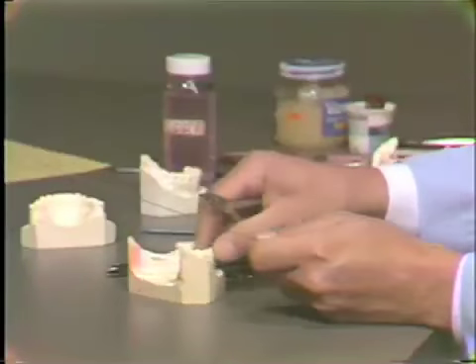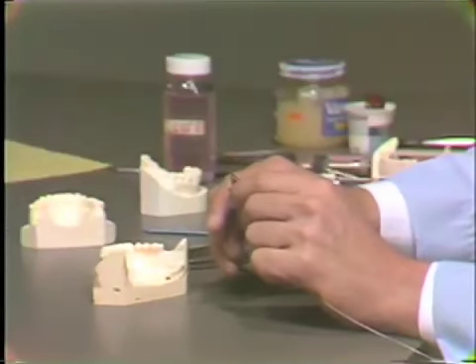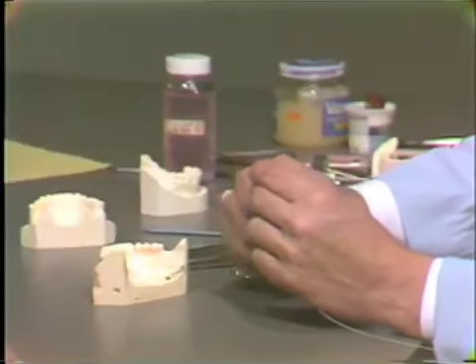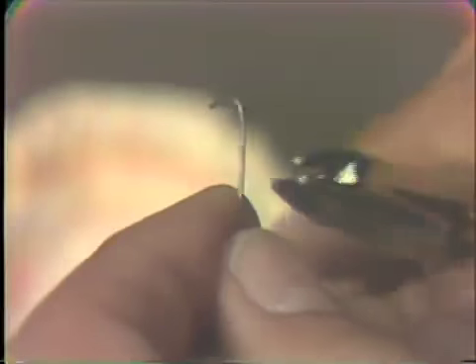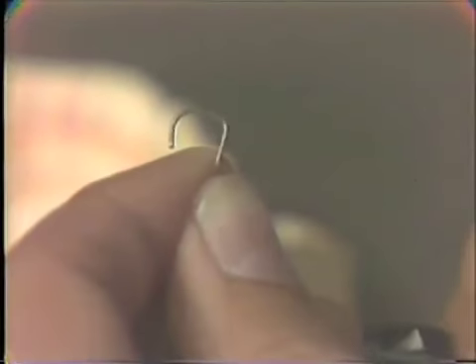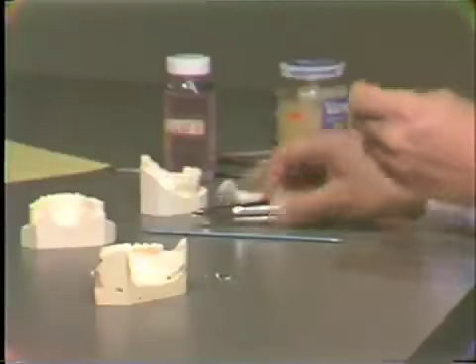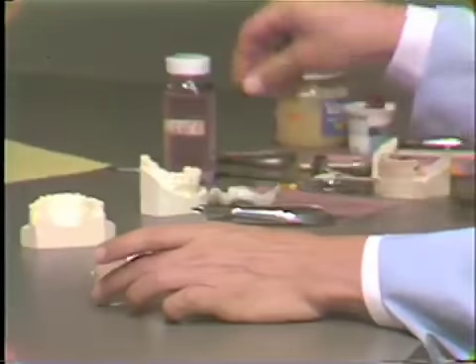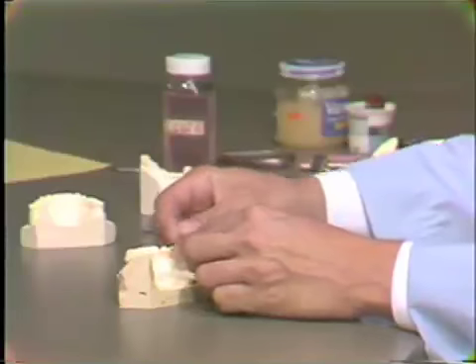Just to show you how you would start the bending of the wire, I'll make a brief start on bending a clasp. You can see you can bend a curvature in the wire with the 118 as well as this 200. I'm not going to bend that total wire, but you can see that I have made one for the bicuspid area. One should be made also for the molar area.